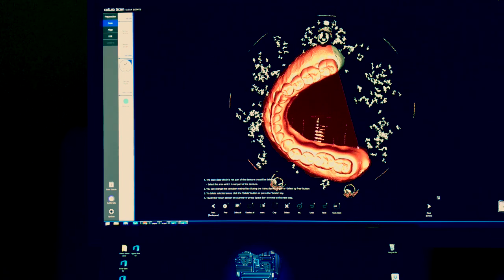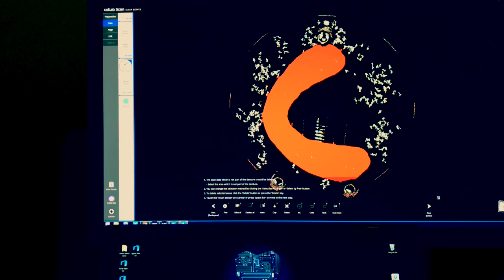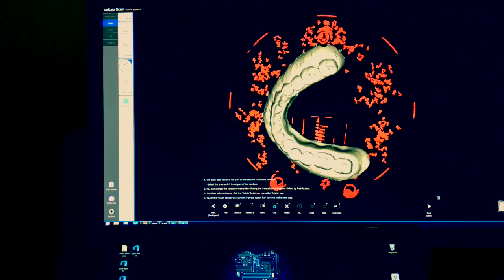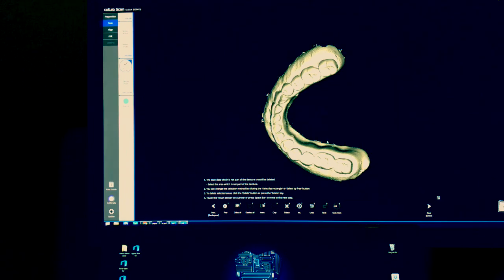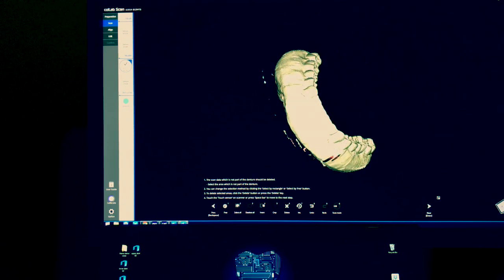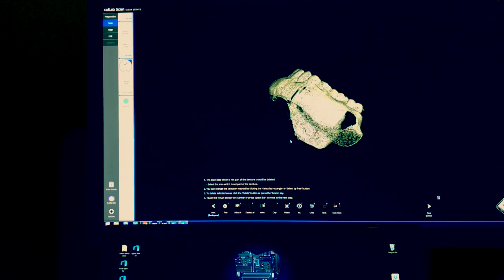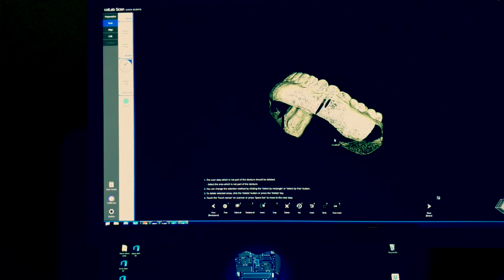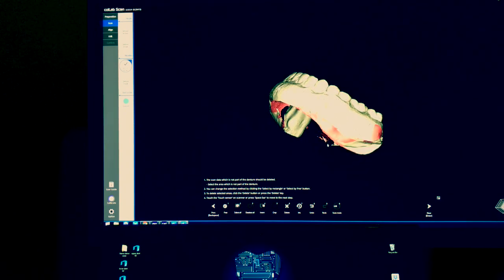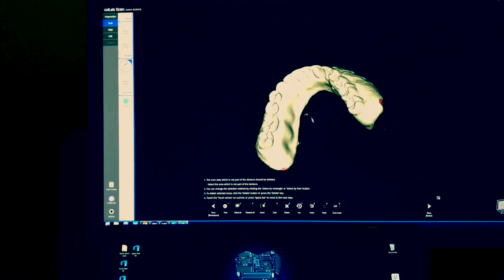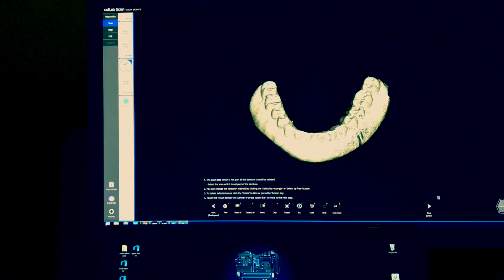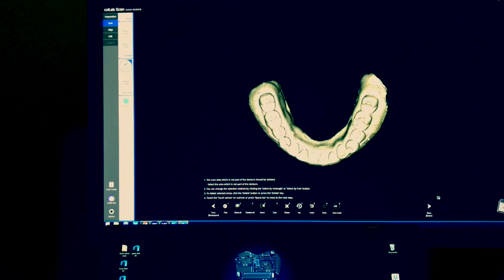I'm going to select the denture - we're going to have the inside part later so it's going to repeat this process twice. In my case it's going to be for the upper and lower. Now that you have the denture selected, I just click crop and it will get rid of the noise. See, it's really easy. If you have some more noise here, then you select it and delete. Super easy, very automated.